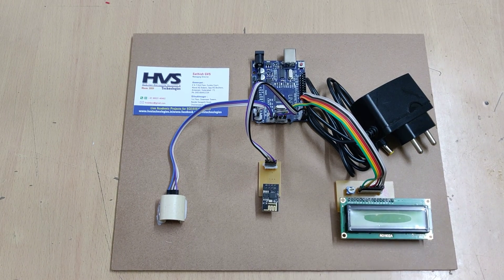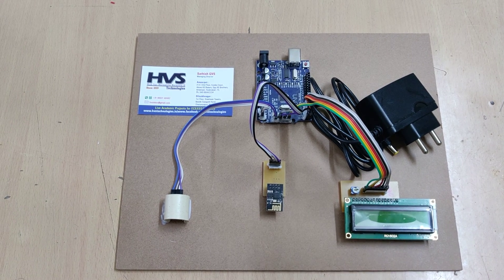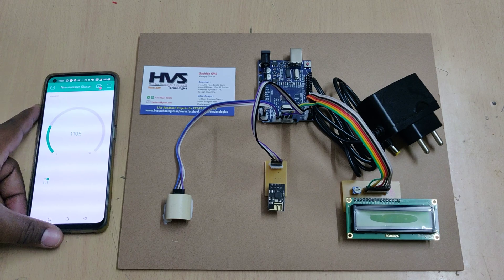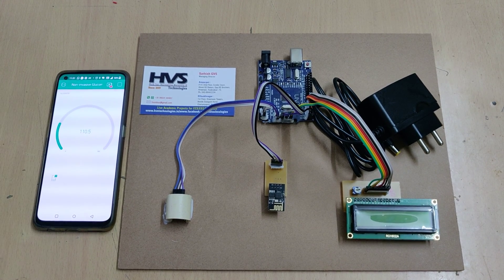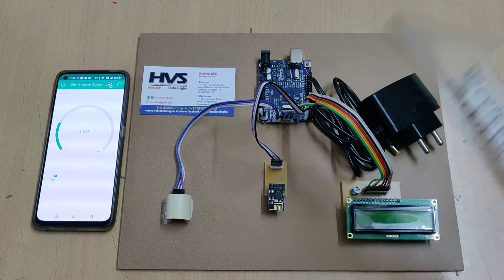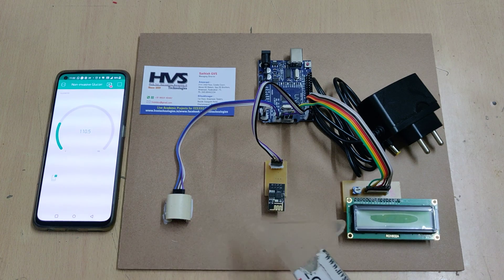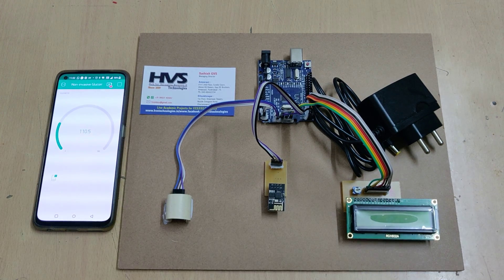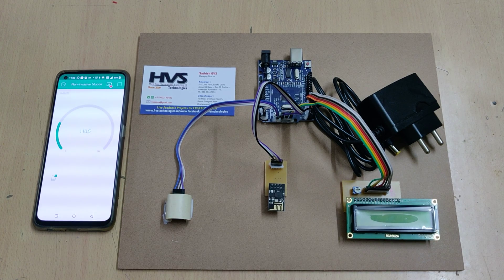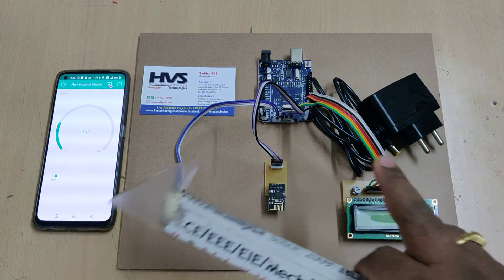Welcome to the demonstration of a non-invasive glucometer based on IoT. In this project we implemented IoT technology. In previous versions we implemented monitoring of glucose levels using a non-invasive method through Bluetooth. The difference between Bluetooth and IoT is that we can access the glucose level data from anywhere in the world using this Blynk application.